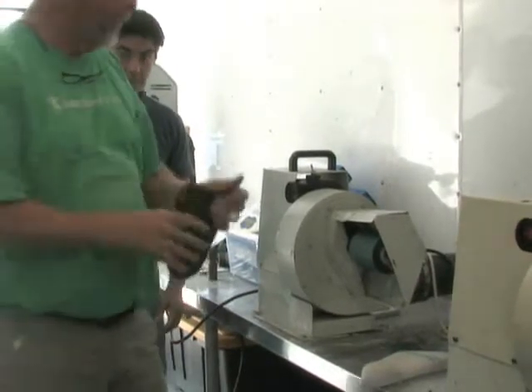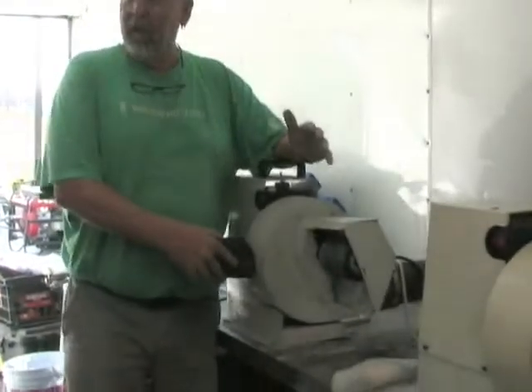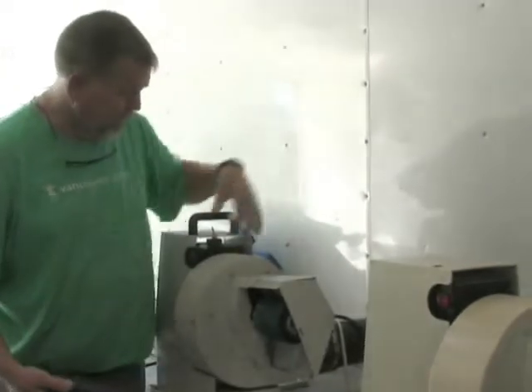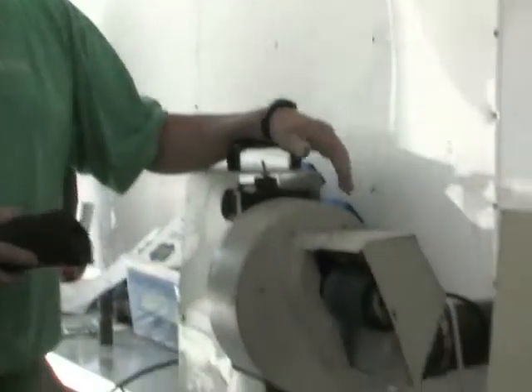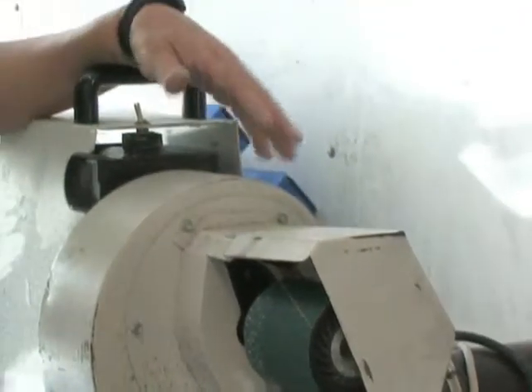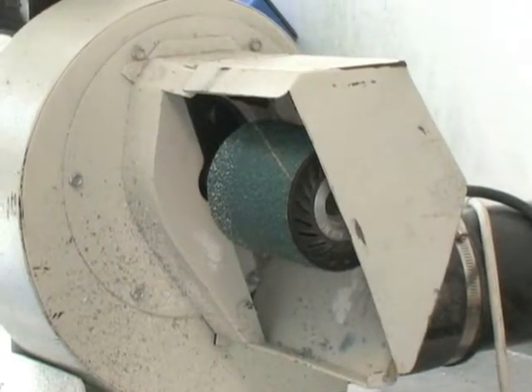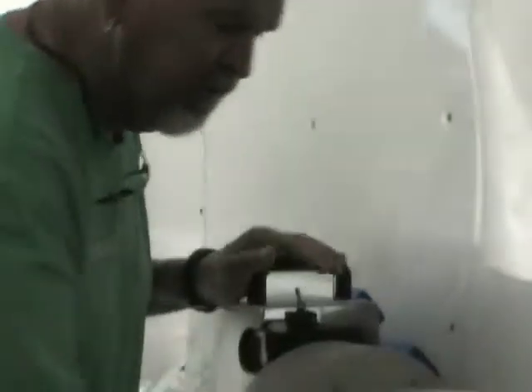The vacuum system sucks it in here and blows it out and up — one switch on, one switch off, not that complicated. These are great grinders — interchangeable wheels, about sixteen hundred dollars apiece. They're German grinders — German equipment's always more expensive, it's like a little BMW of the grinders. I've got my landmarks exactly where I want to be.